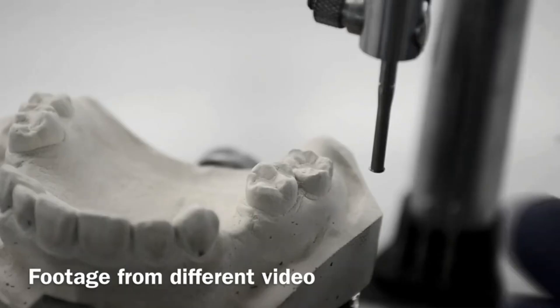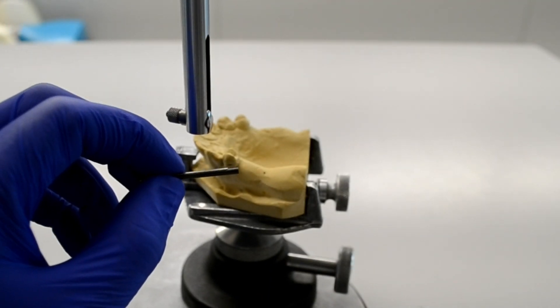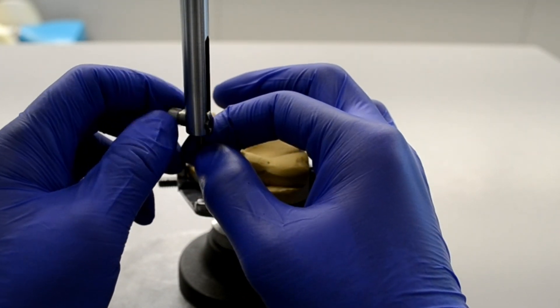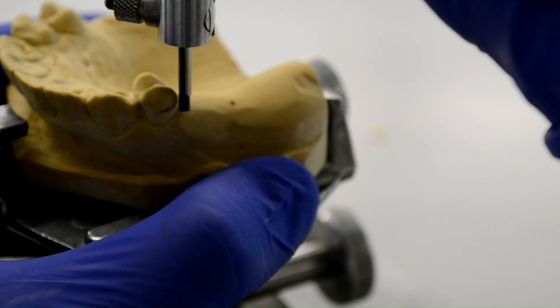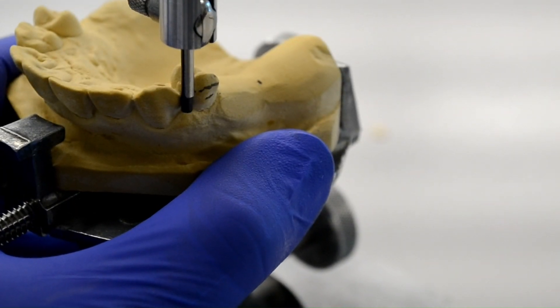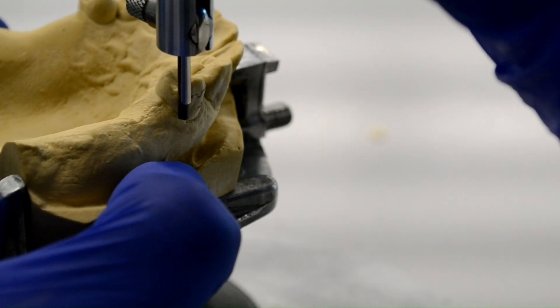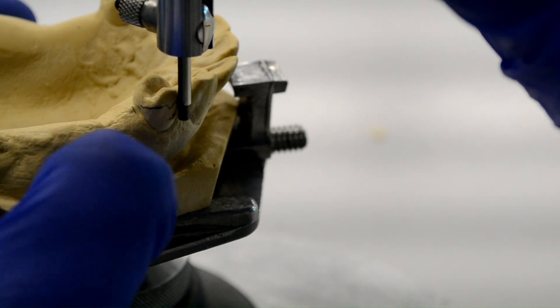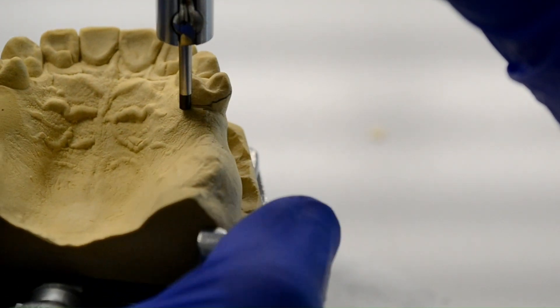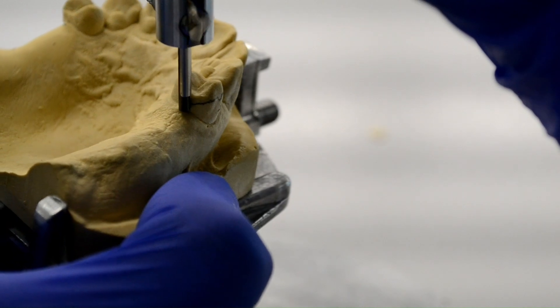However, in the design phase, we will mark that area for modification using a red pencil. Now that we're done identifying all the different undercuts, it's time to draw the survey line. This is done using the lead and the metal sleeve, both attached together and then attached to the mandrel. To correctly draw the survey line, we're going to ensure that only the side of the lead contacts the tooth and not the tip. The side of the lead is rubbed against the highest contour of each tooth, leaving a line called the survey line. Anything under that line represents a degree of undercut. Notice how I'm using both hands: the left hand grips the base of the table to move the cast around, and the right hand moves the mandrel up and down to ensure that only the side of the lead contacts the tooth.